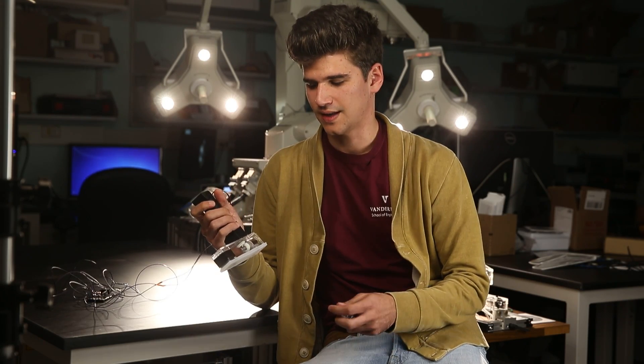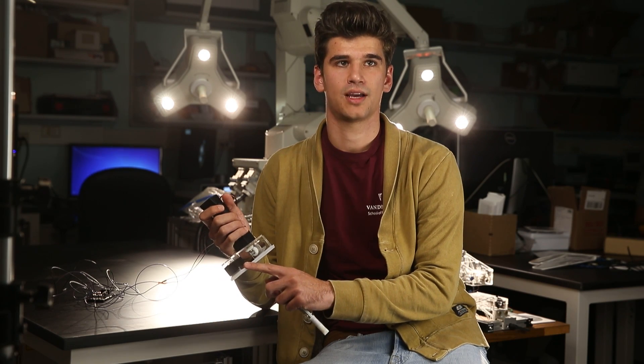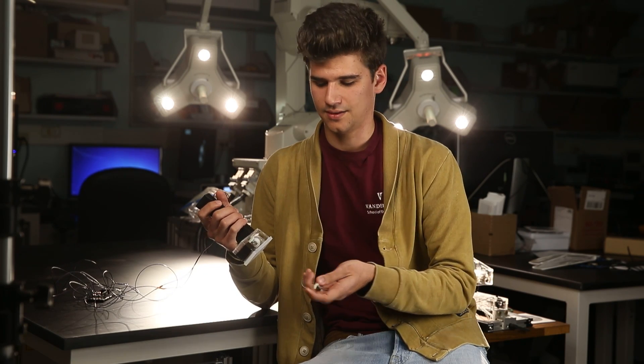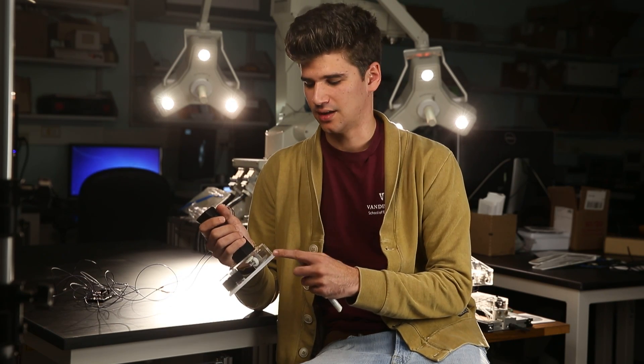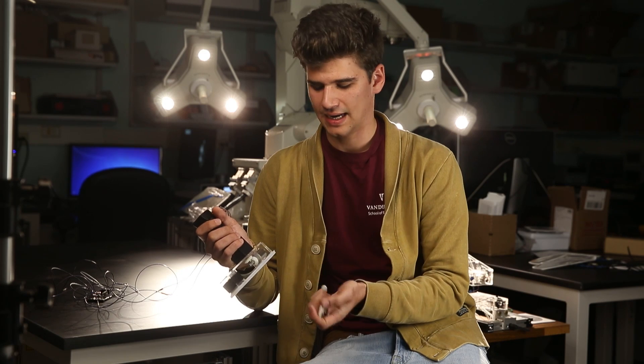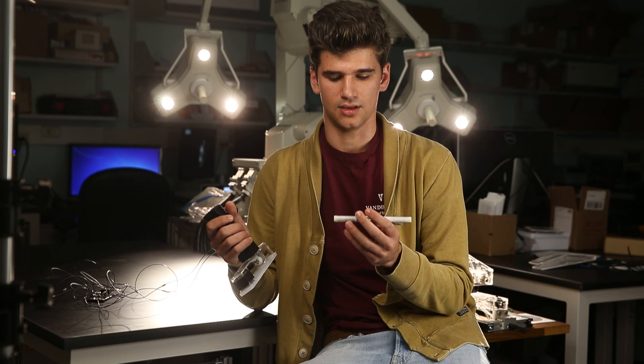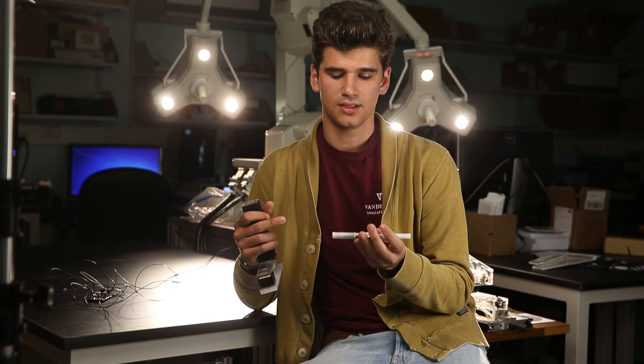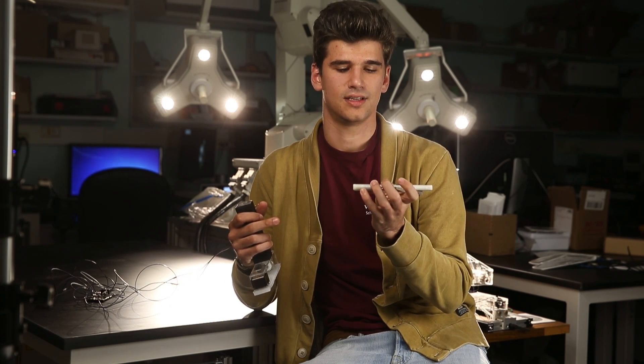Here is the external controller that embeds anchoring permanent magnets, which it uses to couple with another magnet inside the device. The two are used for moving the device around and stably docking it while inside the human body. The other magnet is controlled by a motor, and its rotation allows a second magnet coupled with it inside the device to rotate at the same frequency. This enables wireless mechanical transfer of power, so that the internal magnet functions like an internal motor with higher power specifications than normal micromotors.